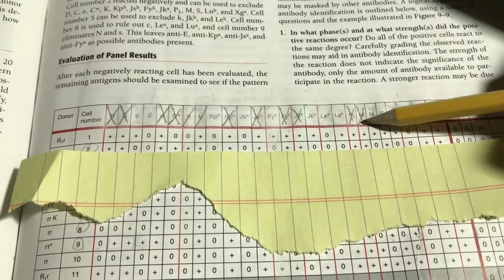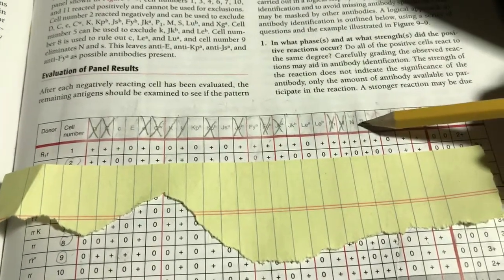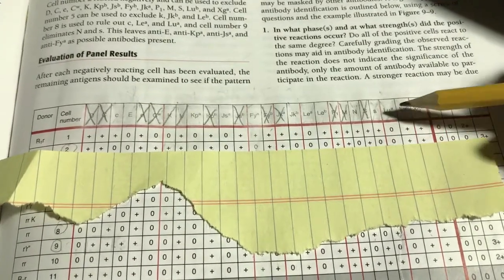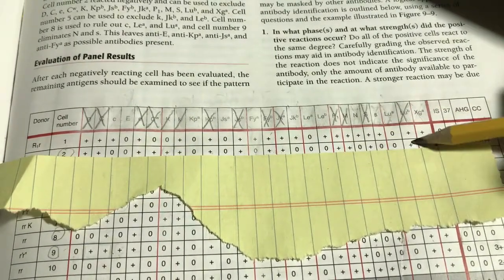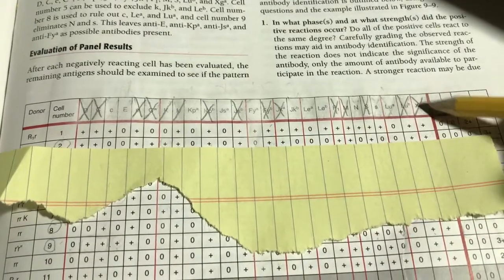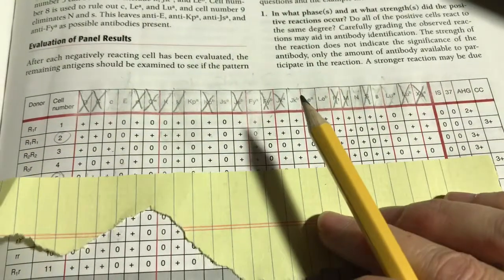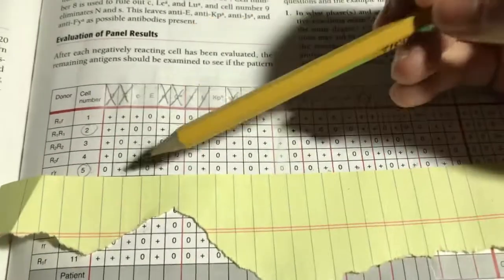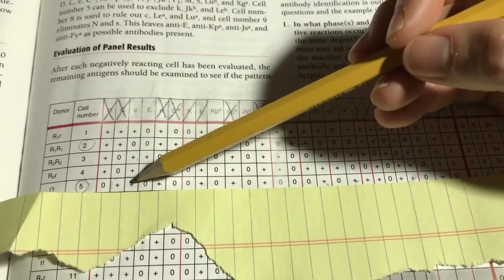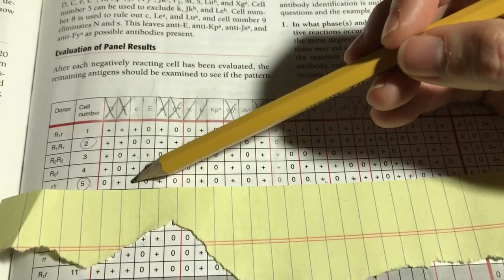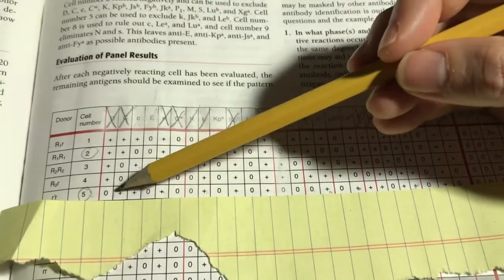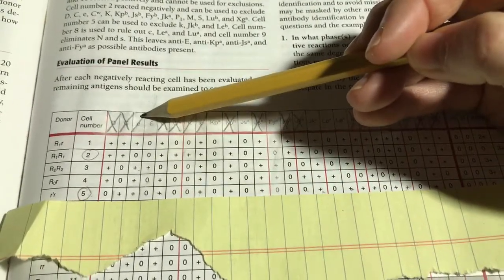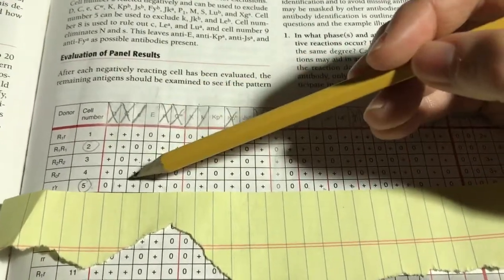I'm going to rule these out halfway. They're heterozygously expressed in this case. They're both present, making each other weaker, potentially weaker. It's homozygously expressed, the strongest it can be. M is homozygously expressed. It goes with N. Big S, homozygously expressed. It goes with little S. It's by itself. It's the strongest it can be.